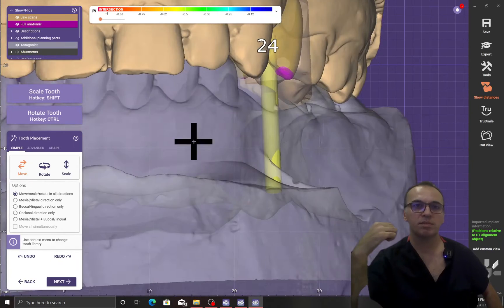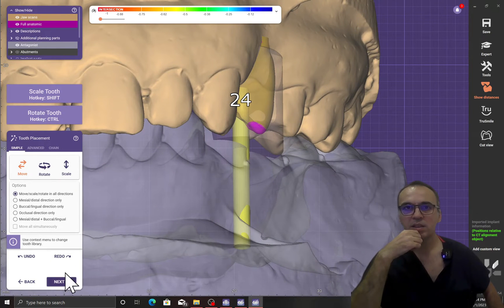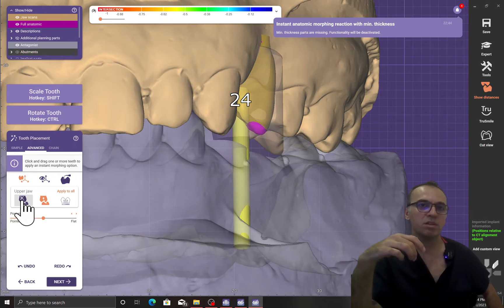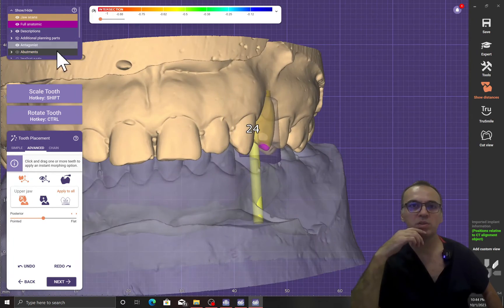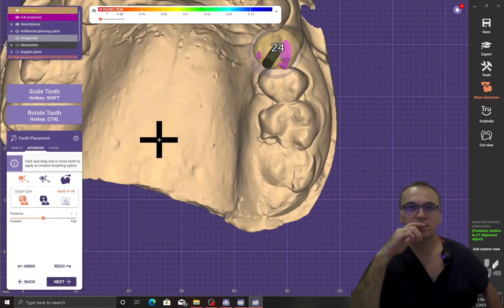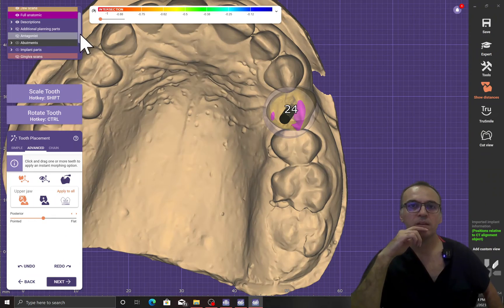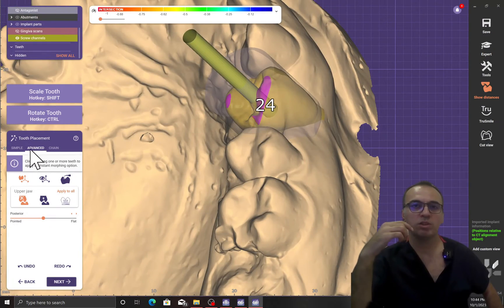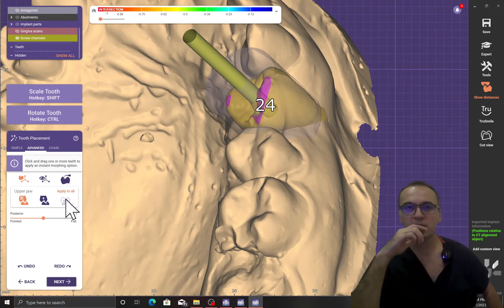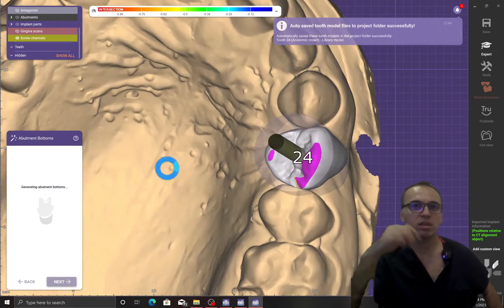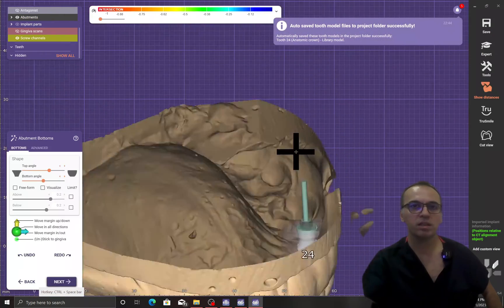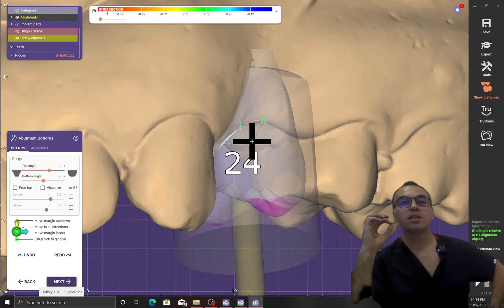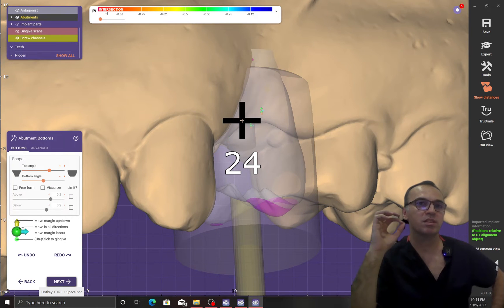The software uses the previous data I brought from Exoplan, and it includes the teeth, the implant position, and the relation between the parts. But I want to change some features like anatomy, contact, and screw axis. First of all, this is one of the secrets that makes this process far easier.